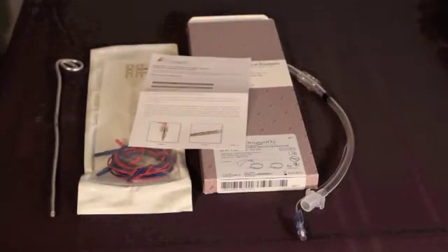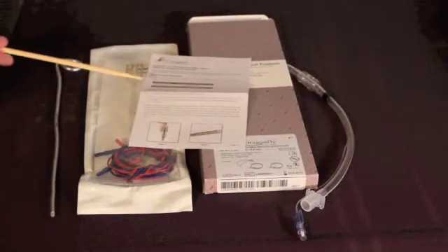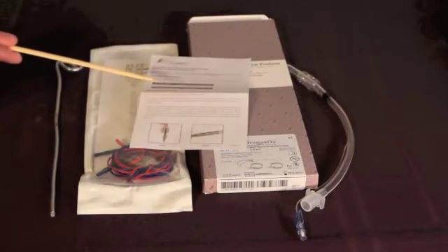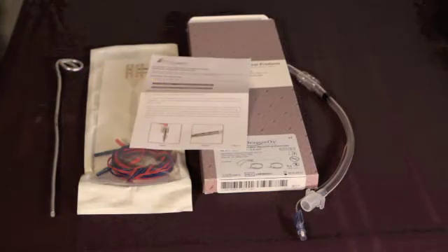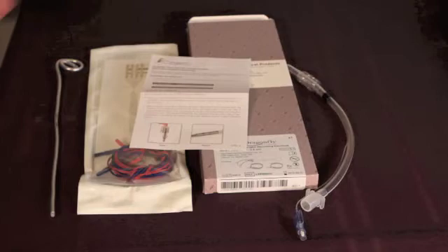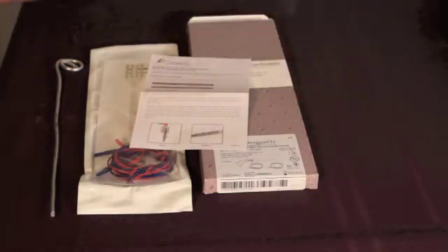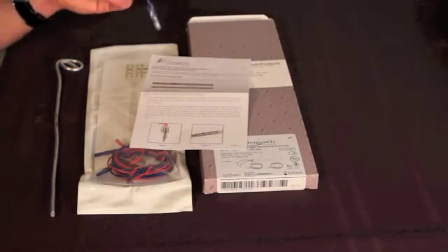In this case we are going to be using an LSC 500 DCS, which is for endotracheal tubes with inner diameters of 6.0 to 7.5 millimeters. In this case I have a 7.0 millimeter endotracheal tube that I'll be using.